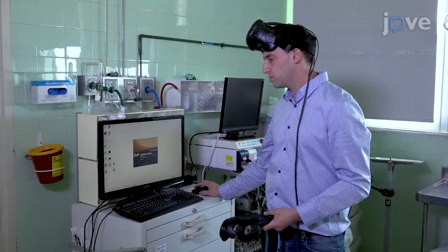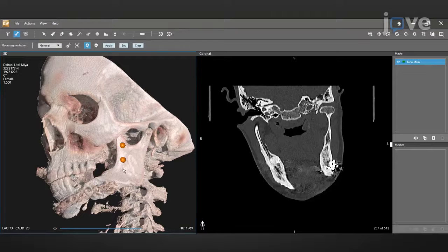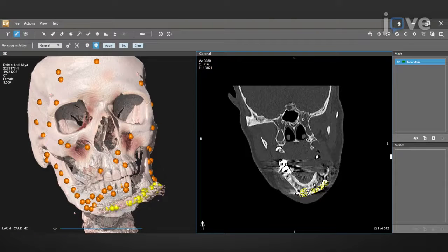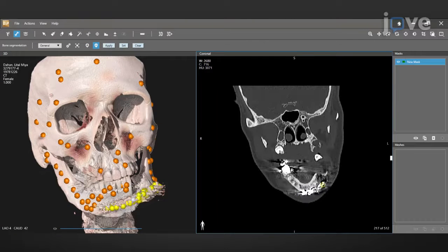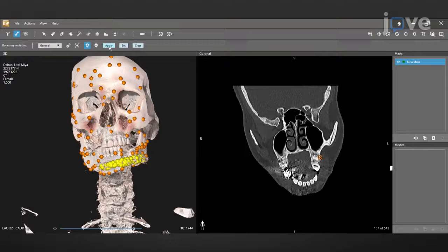For segmentation of the 3D reconstructed model, in the appropriate segmentation software, under the Bone Segmentation menu, select General and use the plus tool to indicate the segment of interest and the minus tool to indicate unwanted segments while scrolling and moving through the scan. Use the Set button that initiates the segmentation and click Apply to create the new segment. To perform a good bone segmentation, a large number of positive and negative markings should be used in the 3D reconstructed model.